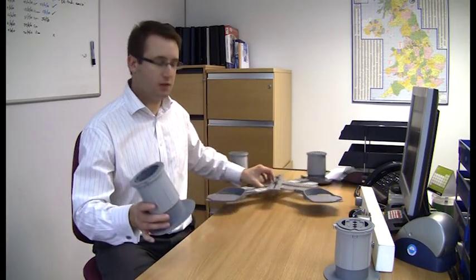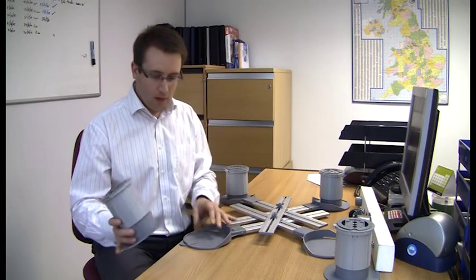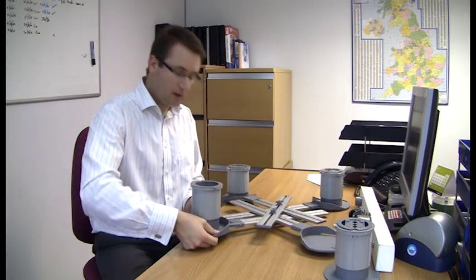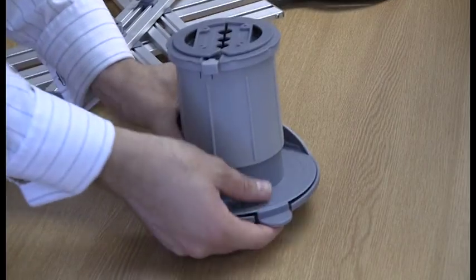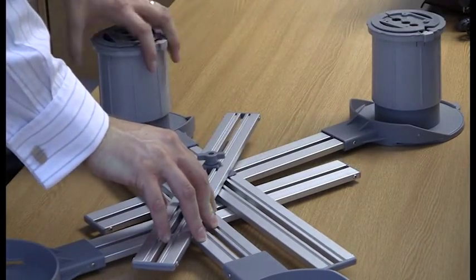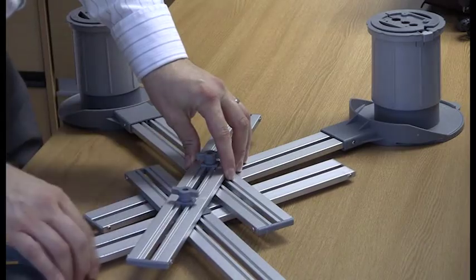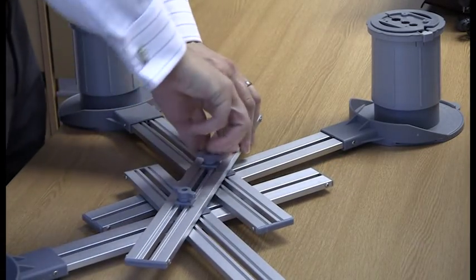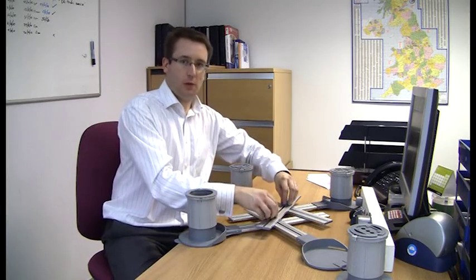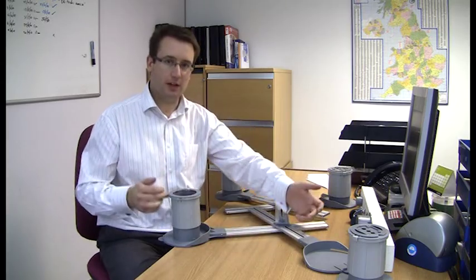Additionally, you can also use the raisers with the new Medici linking arm system. You simply offer the flanges of the raisers up to the base plates, they slide into each groove, and then they clip in at the back. You can loosen the wingnuts to fit them to a range of armchairs or two-seater sofas, or you can also still use them on a divan-style bed. Or if you loosen the wingnuts completely, you can split them into pairs of raisers for use across a bed, either a single or a double bed, if you also introduce an extra short spreader bar.